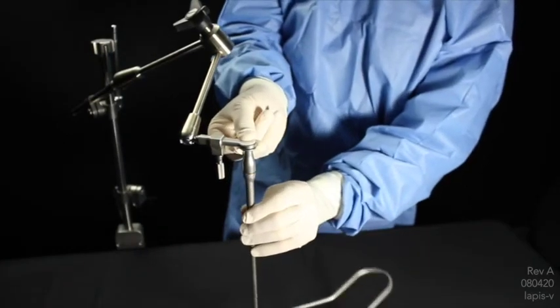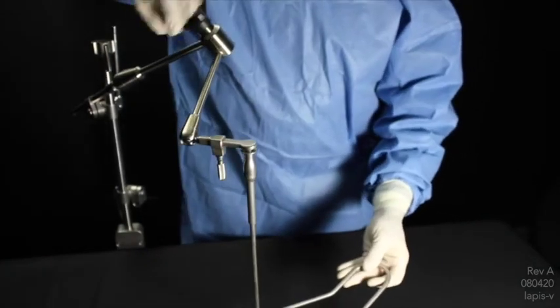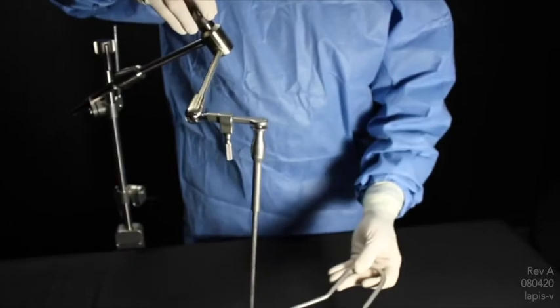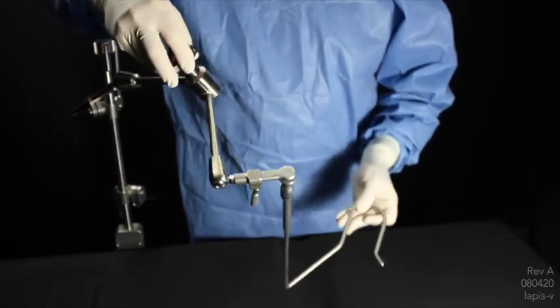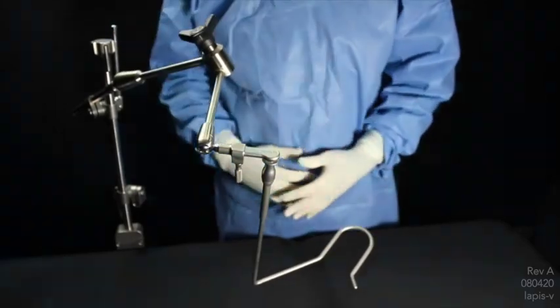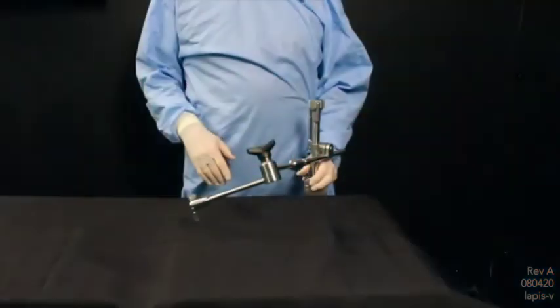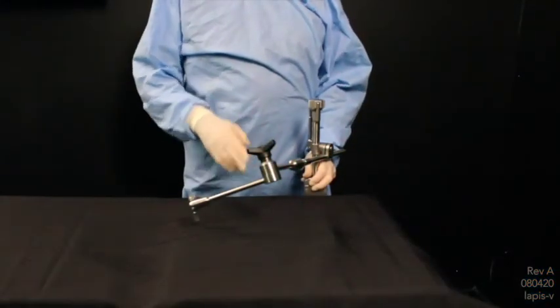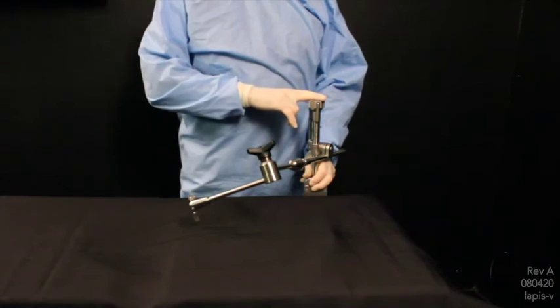The S-Lock Nathanson hook gives you the rigidity of retraction without the slippage and rotation. For pediatric use, we suggest using our 11-inch rail clamp.